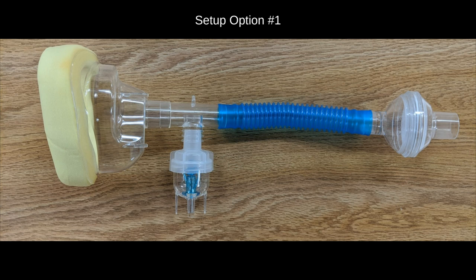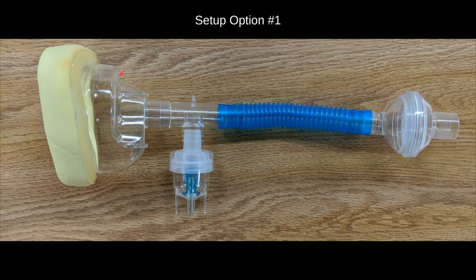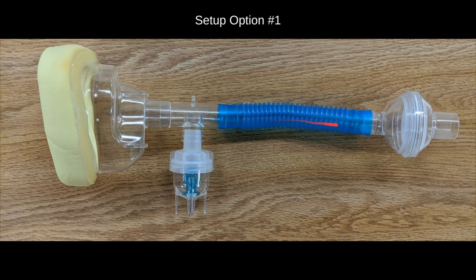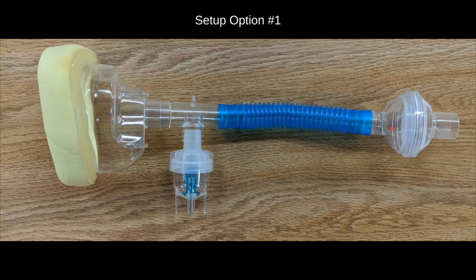This is what that might look like all put together. Again, CPAP masks that you're familiar with, the standard nebulizer setup, and on the end of that nebulizer tube, placing the HEPA filter.